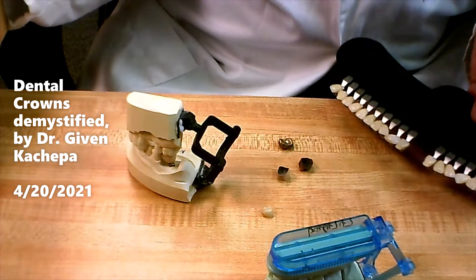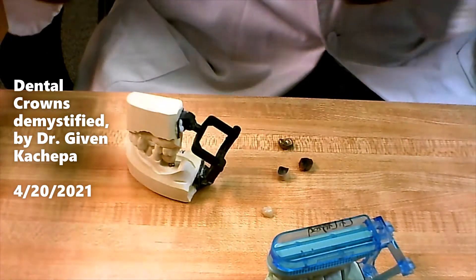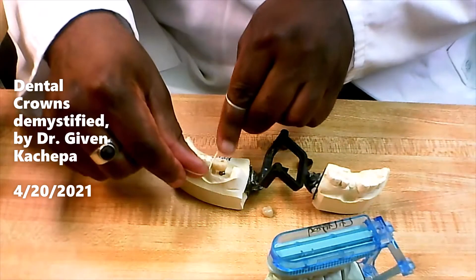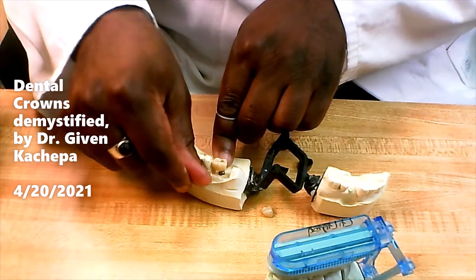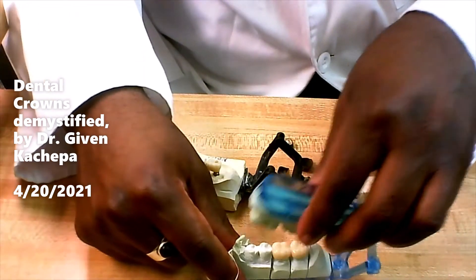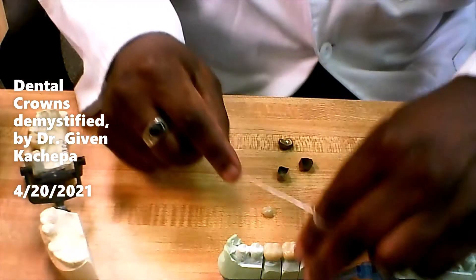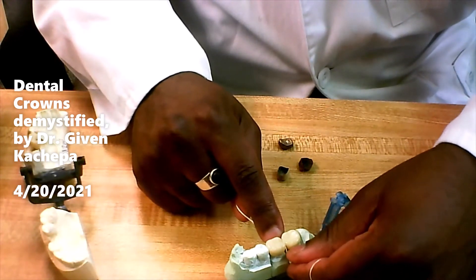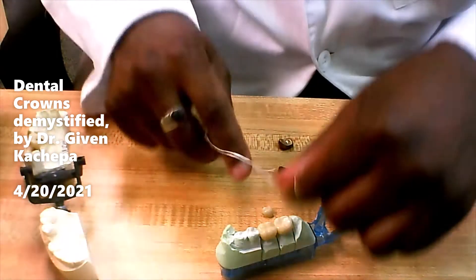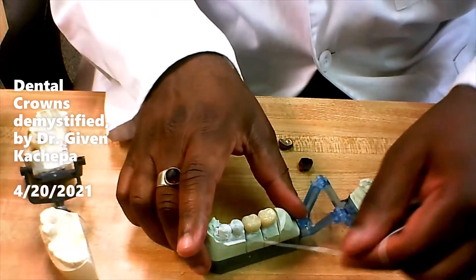Once that's done, the dentist is going to check to make sure you can floss in between your teeth. I'm big on flossing — I always tell all my patients to floss. You should be able to come in here and floss like that and pull it out. On this model here you should be able to floss in there — maybe a little bit tight, but we can adjust that so you can floss on the mesial of the tooth as well.